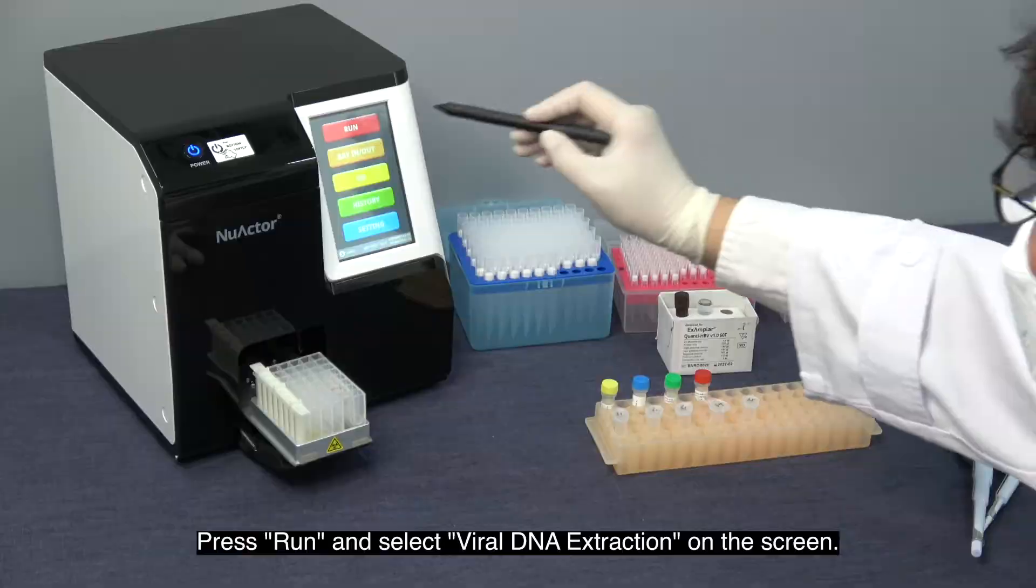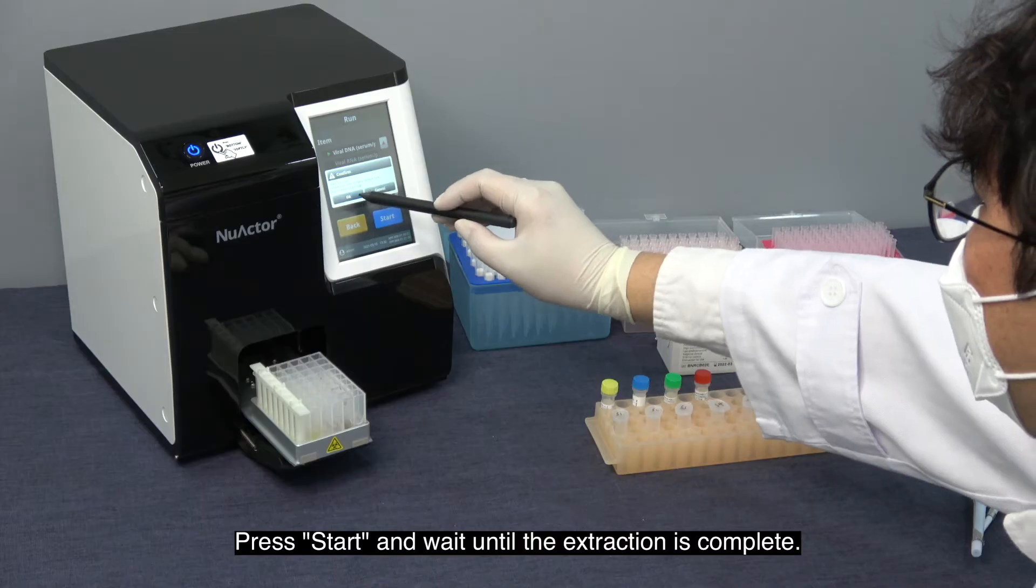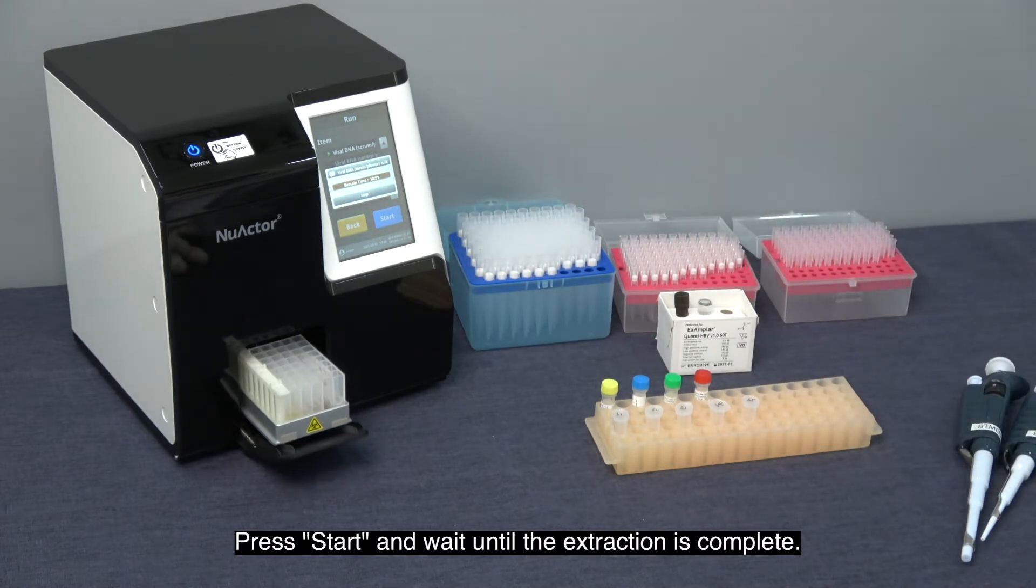Press run and select viral DNA extraction on the screen. Press start and wait until the extraction is complete.